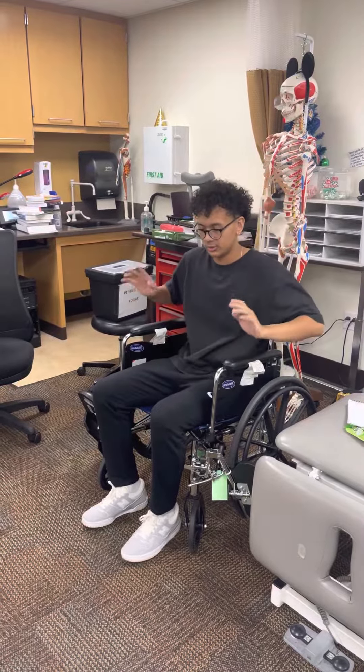So crutch, bad leg, crutch, good leg, crutch, bad leg, crutch — so you can feel the chair. Get these out, put them on our bad side. Up with the good, down with the bad. Have them here and here, and then go and lower yourself.